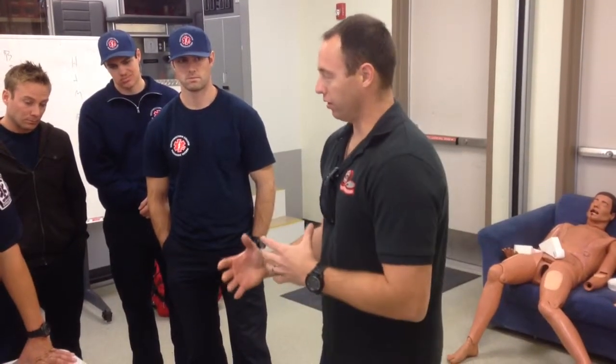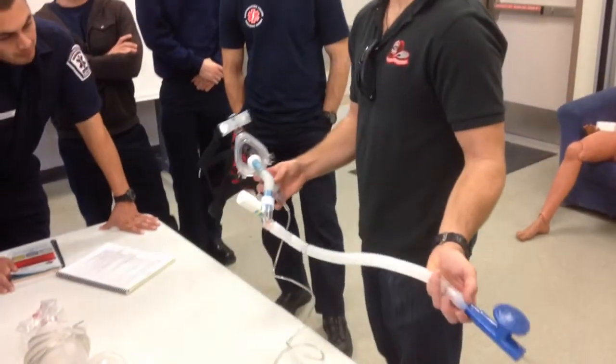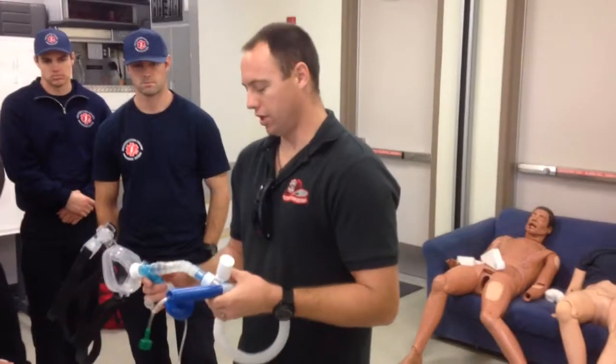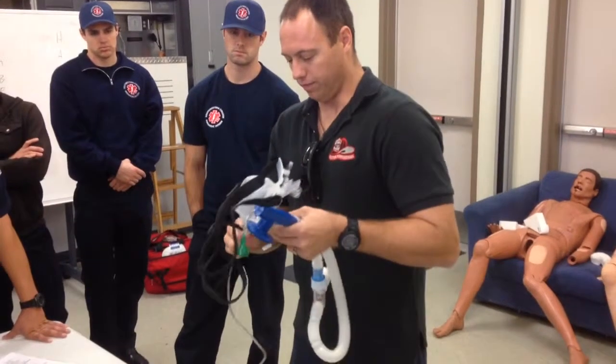Then separately, in another Ziploc bag, there's another one set up to plug into a CPAP. So there's no thinking on a call. That's done prior to the call, so you can just plug it together and get moving, because these patients are typically really sick and you don't want to have to think about what adapters to grab and where to find them when you're in the middle of it. So 6 to 10, start with 6, adjust it as needed.